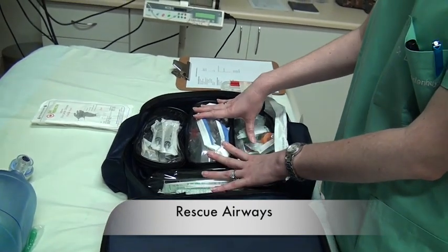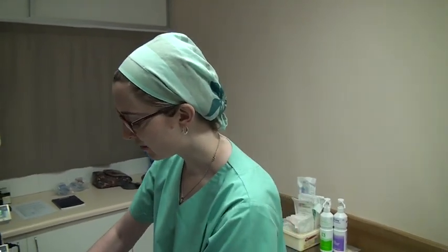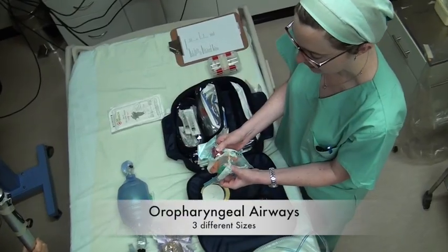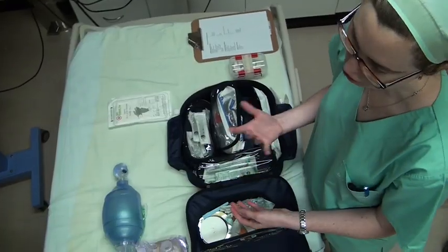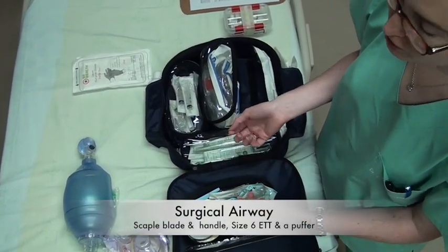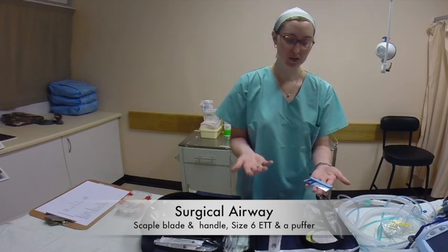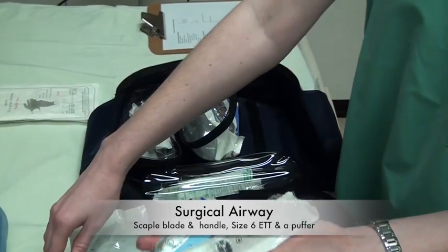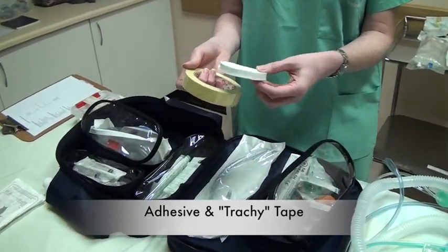For rescue airways there are two options. If it is not a difficult airway, you will have laryngeal mask airways or LMAs in three different sizes and an oropharyngeal airway in three different sizes. If you are expecting a difficult airway, we are not going to try to intubate the patient en route; instead we have equipment for a surgical cricothyroidotomy: a size 11 surgical blade, a scalpel handle, a puffer syringe, a size 6 cuffed endotracheal tube, adhesive tape, and tracheostomy tape.